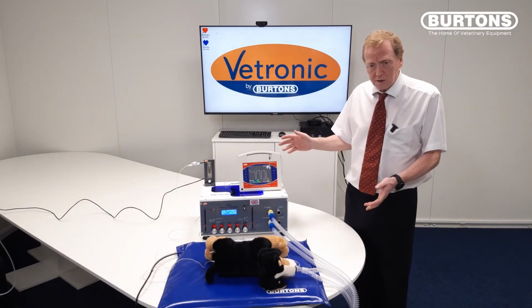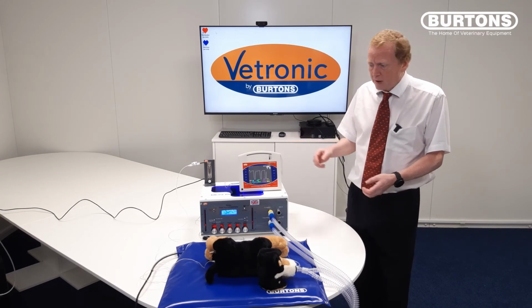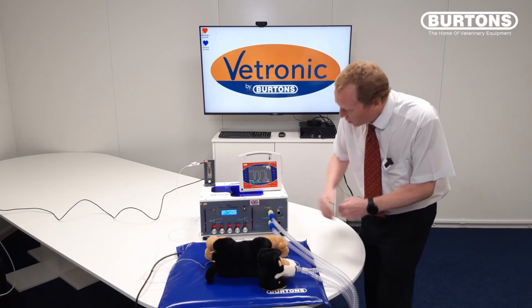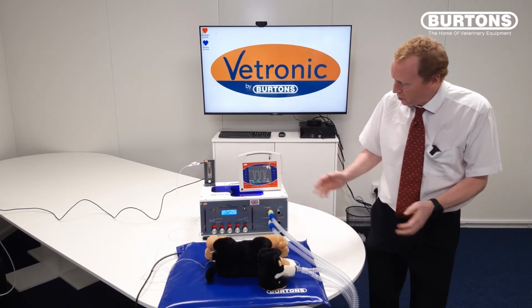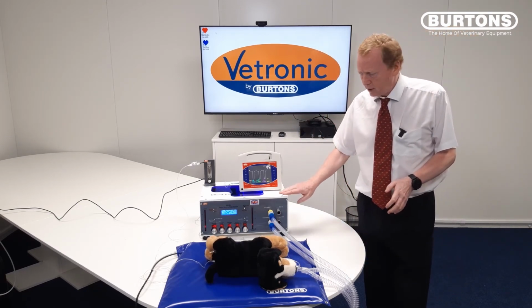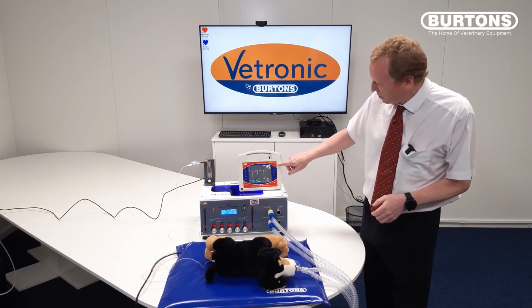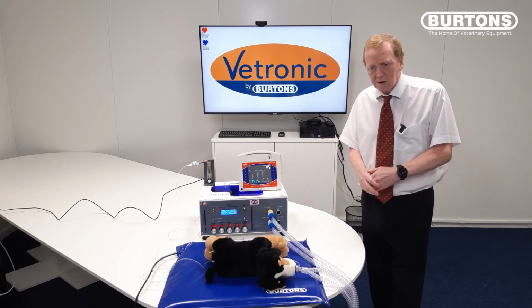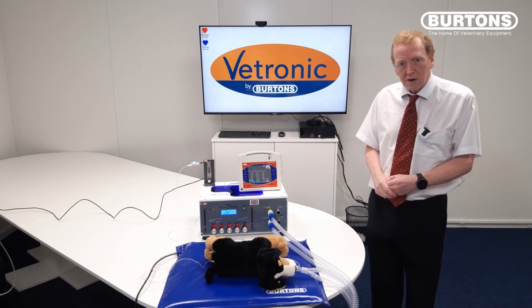And today I'm going to use one of the Vettronics Lightning multi-parameters to do my monitoring. So in this setup today, I've got my Annequin ventilated. We've got a tidal volume now of about 200 mils, and a minute volume of about 3 litres, 3.1 litres according to the screen from Merlin. And we're recording the capnogram here, and our capnograph says that we've got an end tidal of 35, 36 millimetres of mercury. So a little bit on the low side for an anaesthetised animal, but certainly within range of normocapnia.